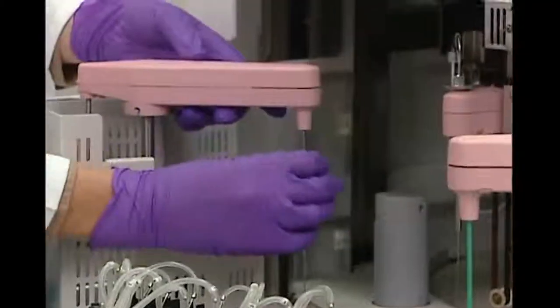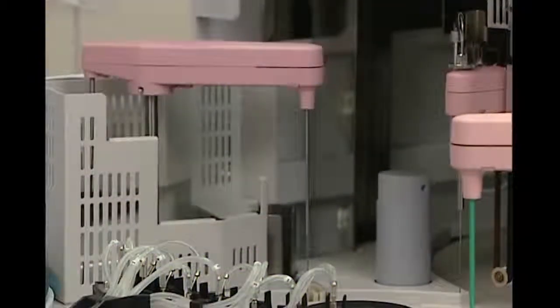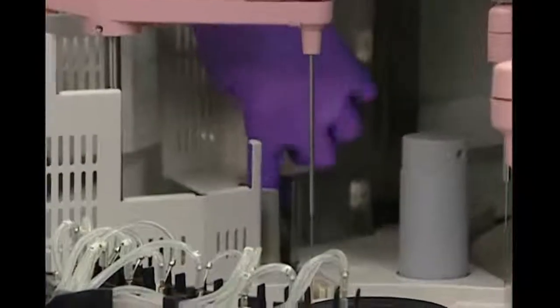When I clean the sample probe, I'm going to take an alcohol swab and wipe down. And then I'm going to clean the inside of the shield pipe.